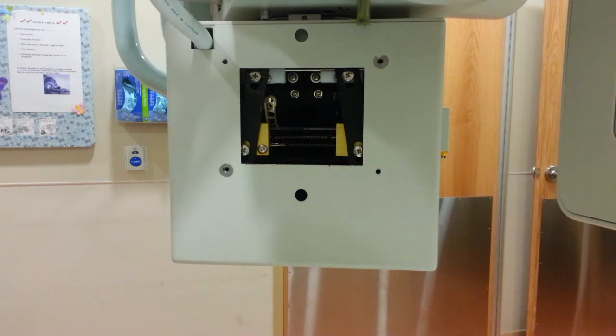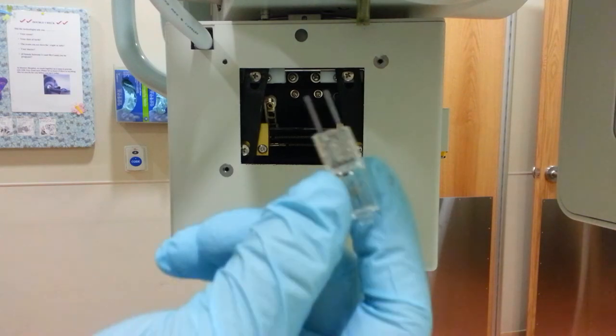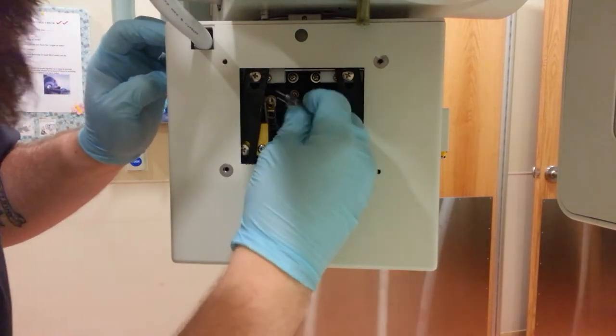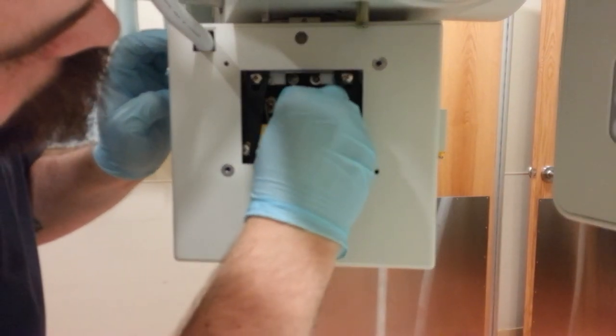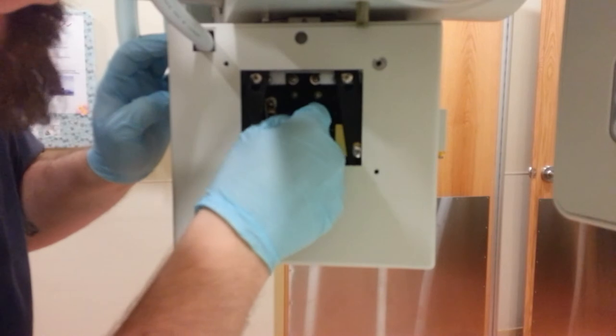Did not turn off my phone notifications there. This is right here. This goes right inside of here. Just kind of pop it right back in place like so.